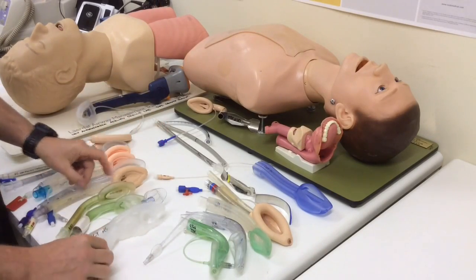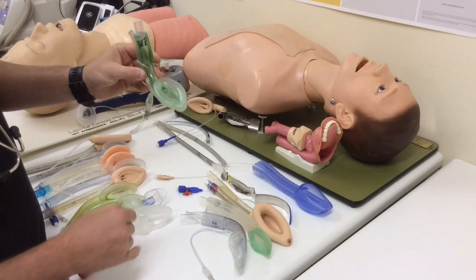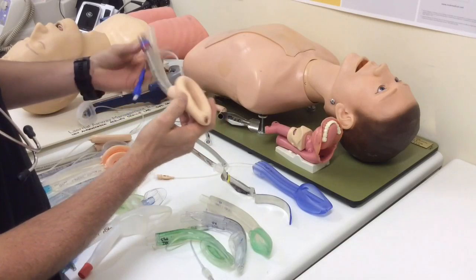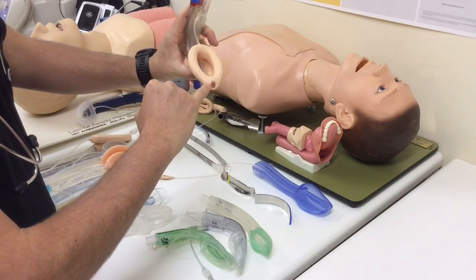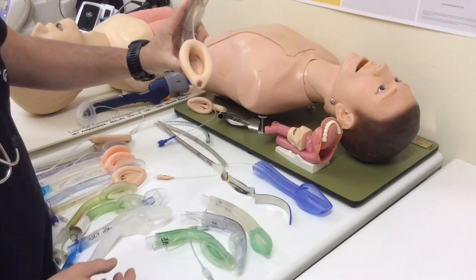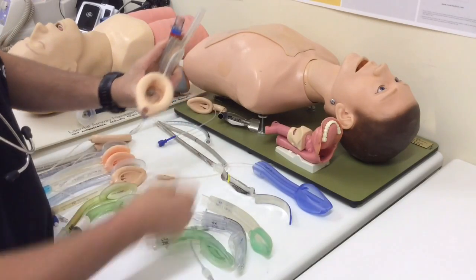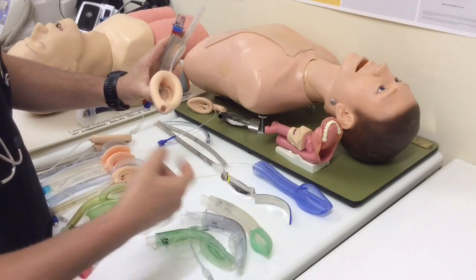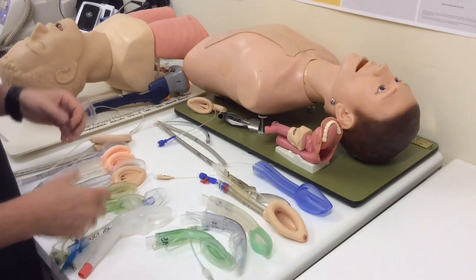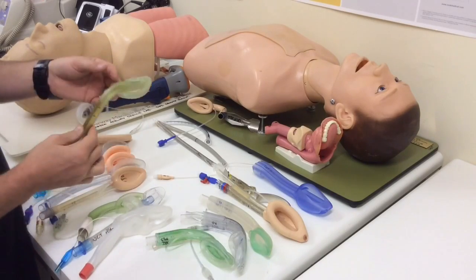The second generation means that there is some method of providing gastric drainage and prevention against aspiration. So here are a couple of second generation devices. Perhaps again the quintessential one would be the ProSeal LMA, and you can see that there's a drainage tube on the tip which comes out over here, and this allows any fluids which are passively regurgitated to come out, rather than going around the bowl and getting into the patient's airway. One can also place a nasogastric tube and decompress the stomach, suction out fluid, etc. So that characteristic of providing gastric drainage and enhanced features again to protect against aspiration is what makes something a second generation device over being a first generation device like this.